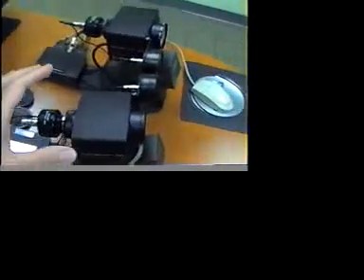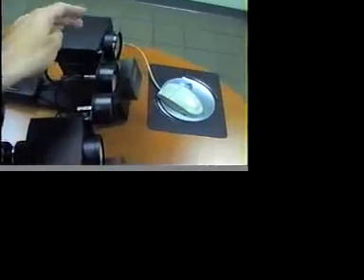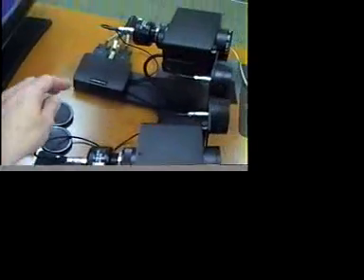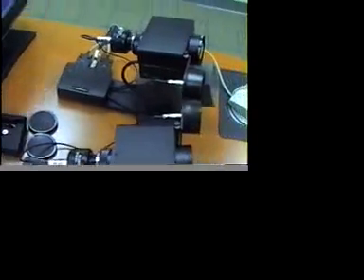Again, note how everything is set up with the cameras pointed at his left and right eye, and make sure that this is the case. Eye imager 2 is looking at his left eye. Eye imager 1 is looking at his right eye.